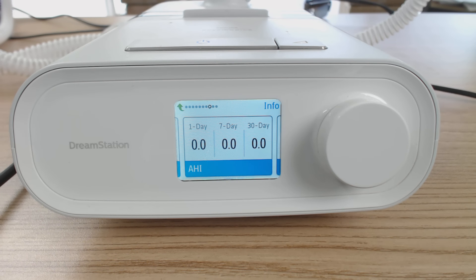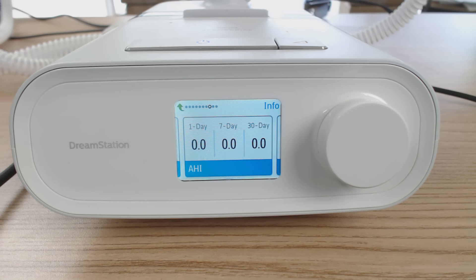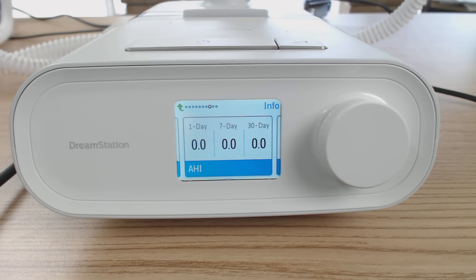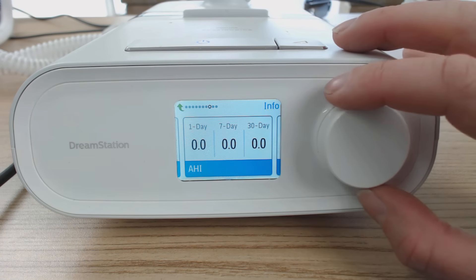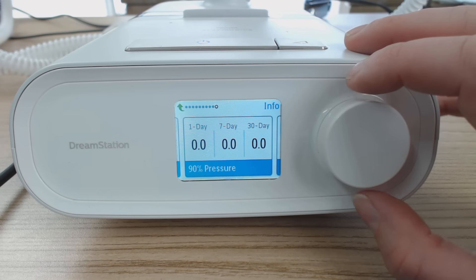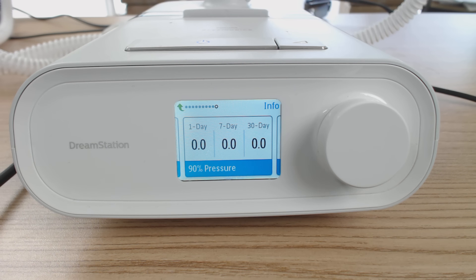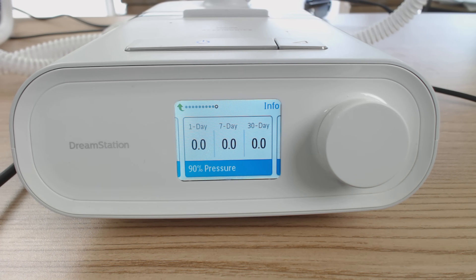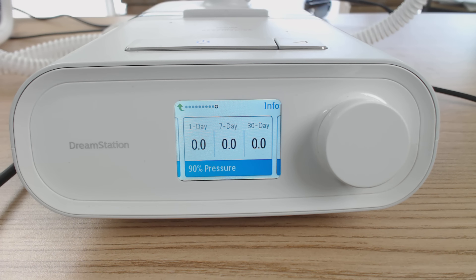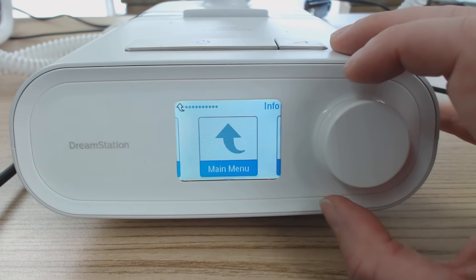Apnea hypopnea index — this is important. We want this to be less than five ideally. If it's between five and eight, it's not too bad. If it's going above 10, you probably need to adjust your settings or speak to your healthcare professional. Always tend to look at the seven-day or thirty-day averages — one day can have anomalies if you've had a few drinks or got a cold. Then this is that 90th percentile pressure I was talking about before. If you look at the seven-day average and it's running at around 12, it gives us an idea where we can bring our auto max pressure down to — so we're not going to be woken up by the machine getting too carried away, but we're still going to control 90% of our breathing.